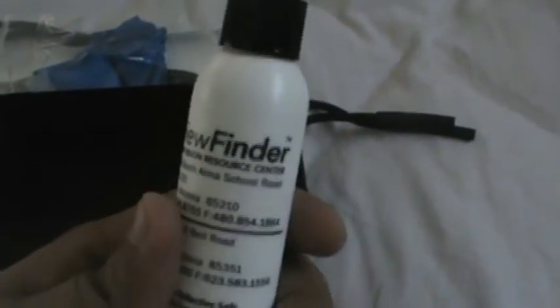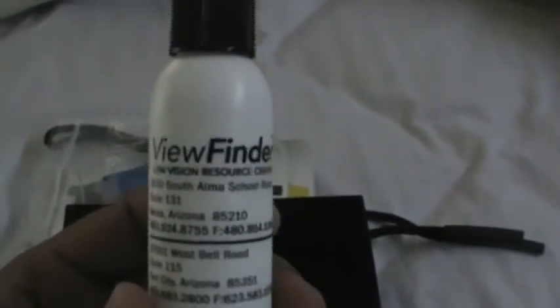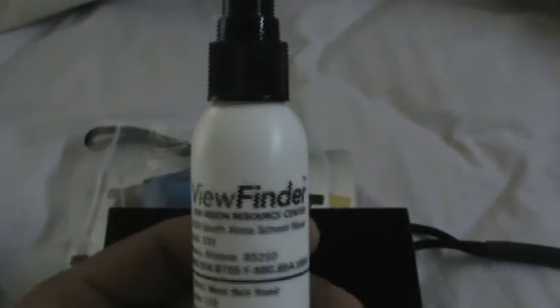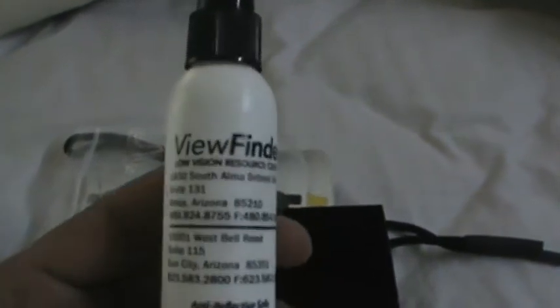And that's it for this box. And this bottle, this is a sprayer we got from the Viewfinder. The Viewfinders are the ones who are basically authorized for these glasses because they're a low vision ophthalmologists.